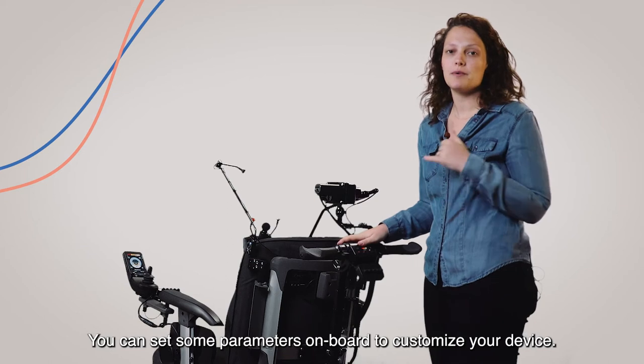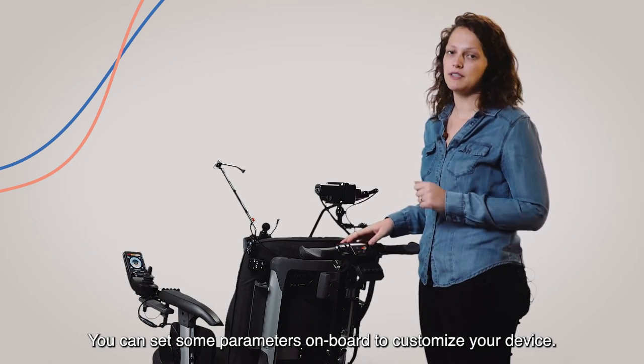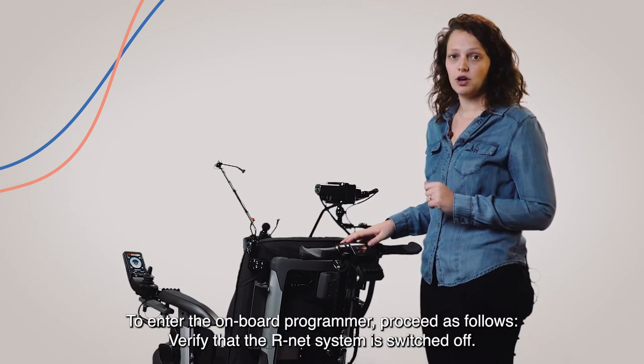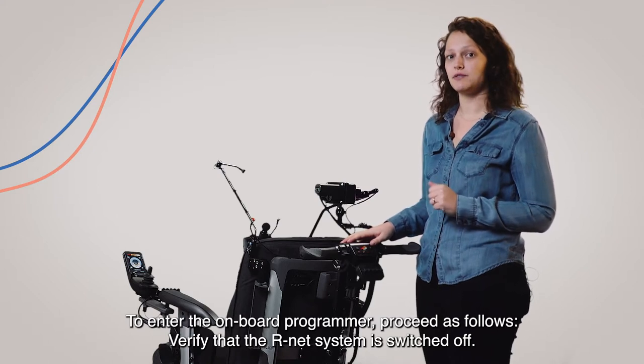You can set some parameters onboard to customize your device. To enter the onboard programmer, proceed as follows.